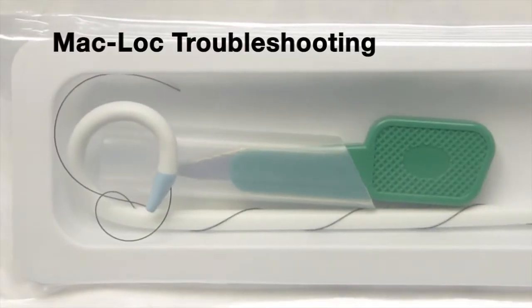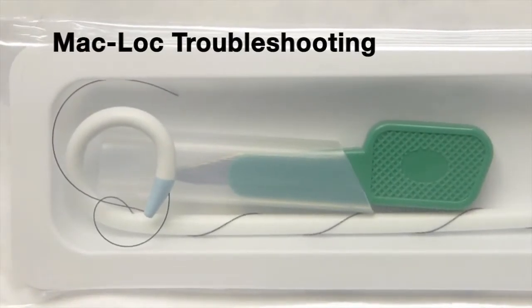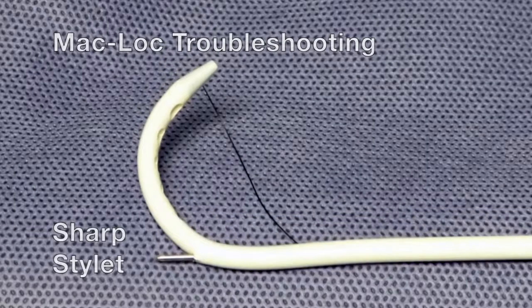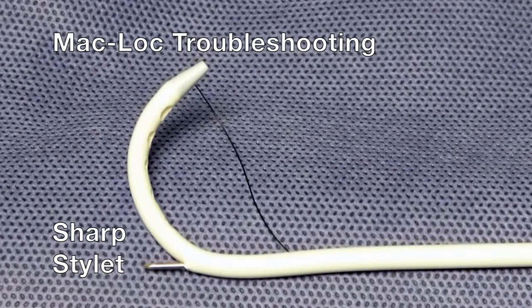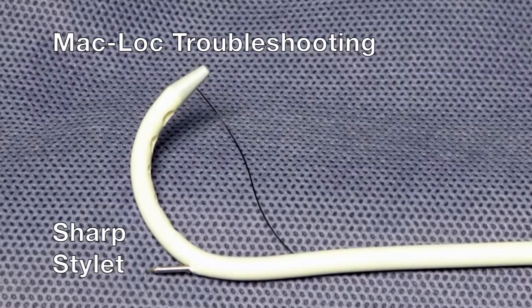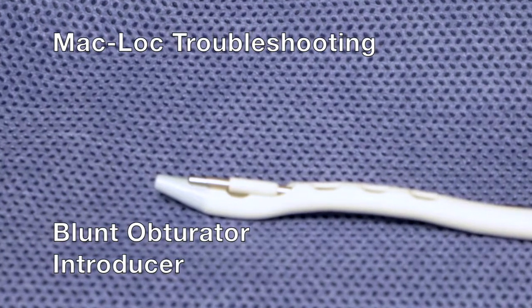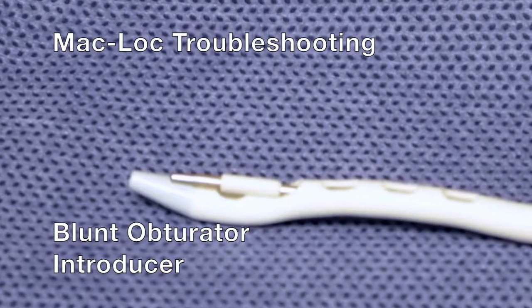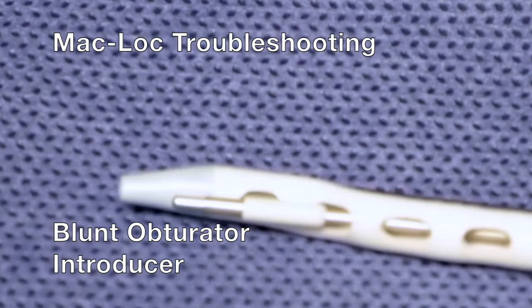MAC-Lock troubleshooting tips: The catheter tip arrives tightly curled, so careful assembly is needed to avoid improper setup. Do not use the sharp stylet to straighten the tip, as it can easily pierce the lumen — always use the blunt obturator. While the blunt obturator is less likely to damage the catheter lumen, it can exit from a fenestration instead of the tip. Avoid these mishaps by using care during assembly.